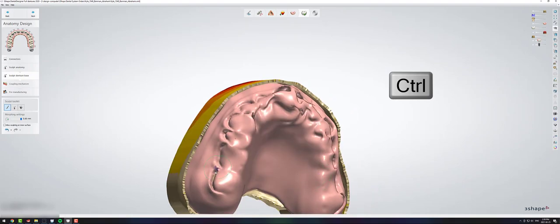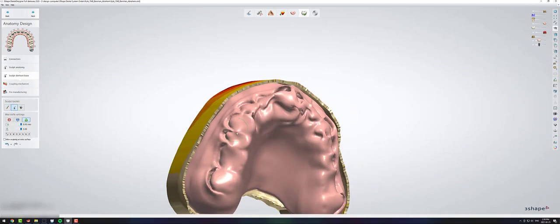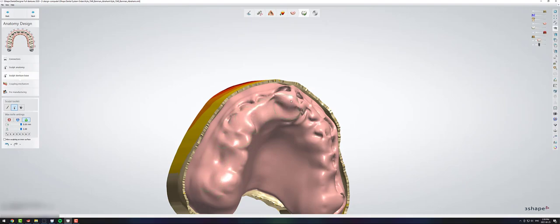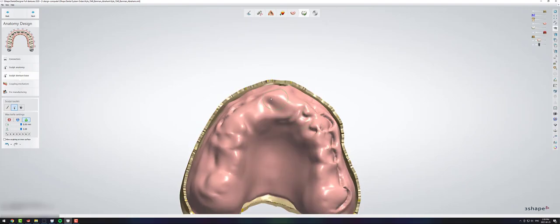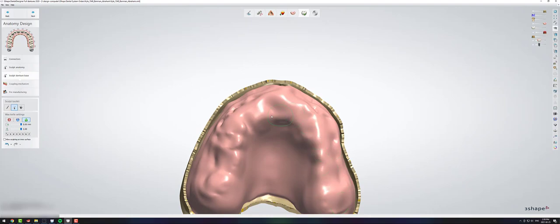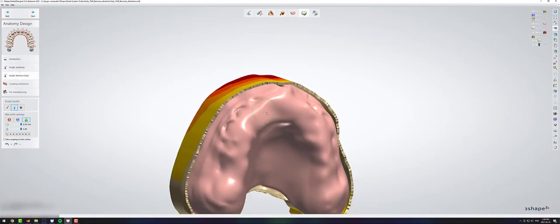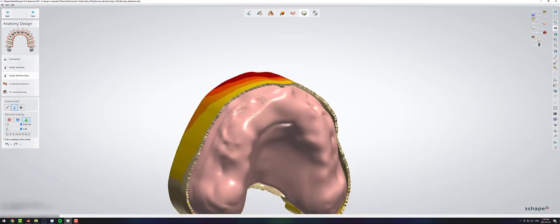You're going to go over to your wax tools, go to smooth and crank it as high as it will go, and smooth out all of those mountains that you just made. And you can see, even if you have really big holes in your wax up, this can fix it up in 30 seconds. No problem. And obviously you would have to go through and wax up the rest of your base, but this is a quick way to patch those holes up.